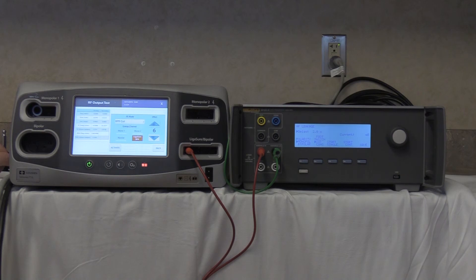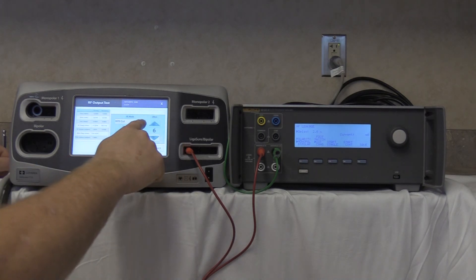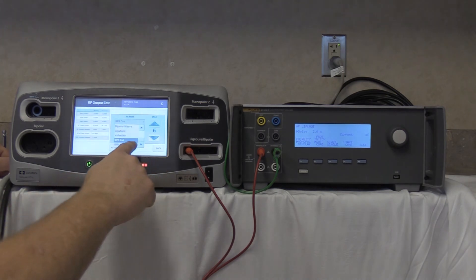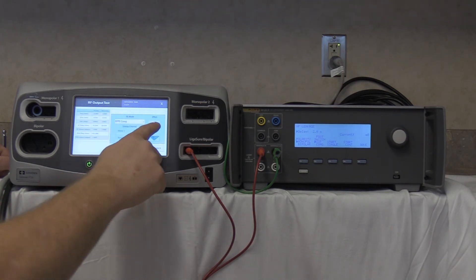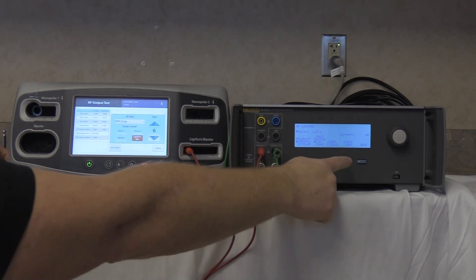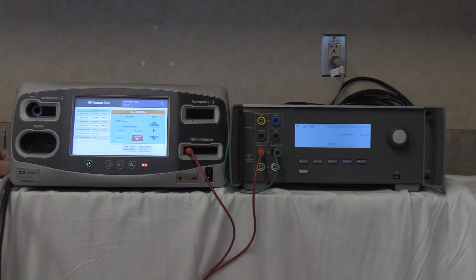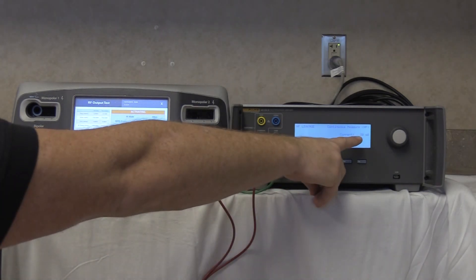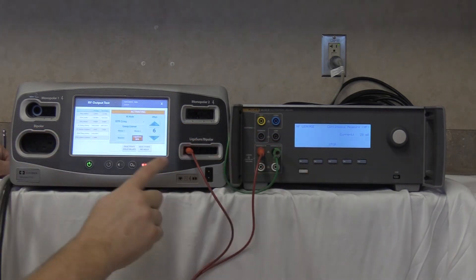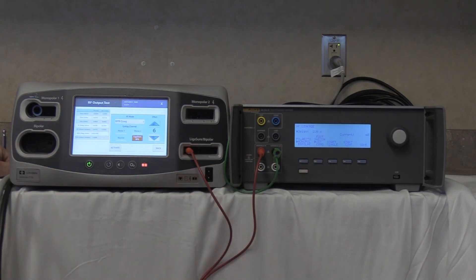Next, connect to the left output line for bipolar resection coag. Still in the left port, select bipolar resection coag, effect 6. Start continuous and activate the FT10. Our reading is 20 milliamps. Deactivate, no-hold, and stop.